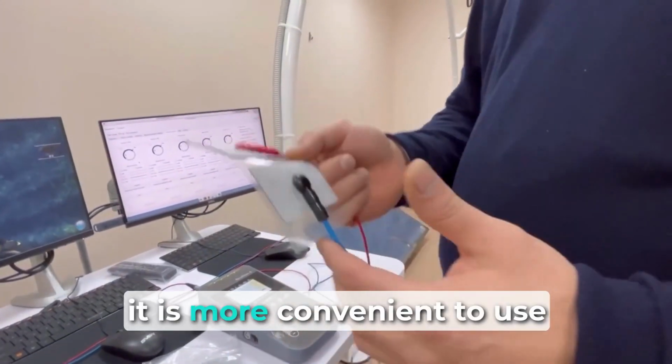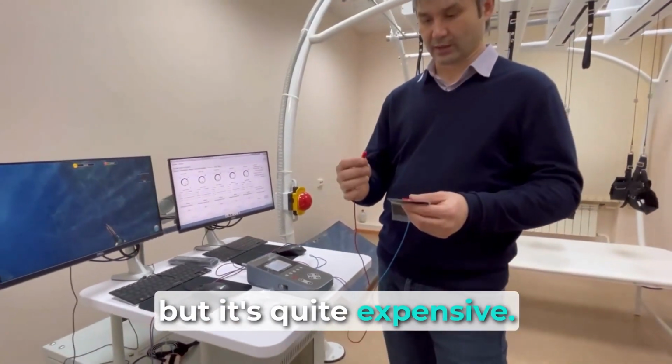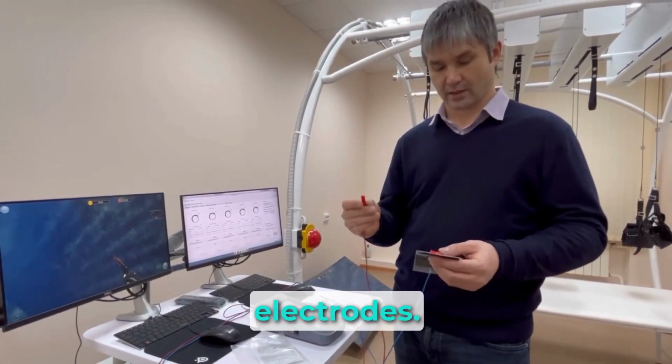Of course, it is more convenient to use electrodes with a pin connector in clinical practice, but it's quite expensive. Using an adapter, you can use inexpensive electrodes.